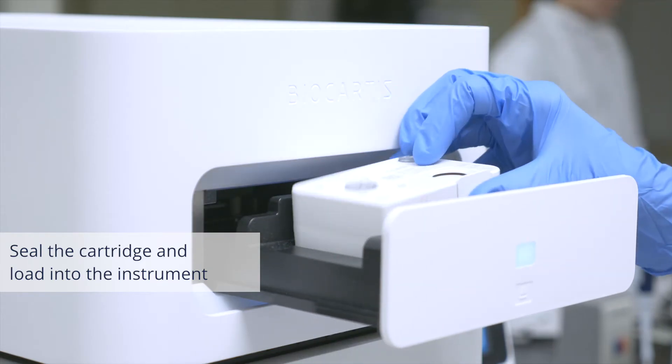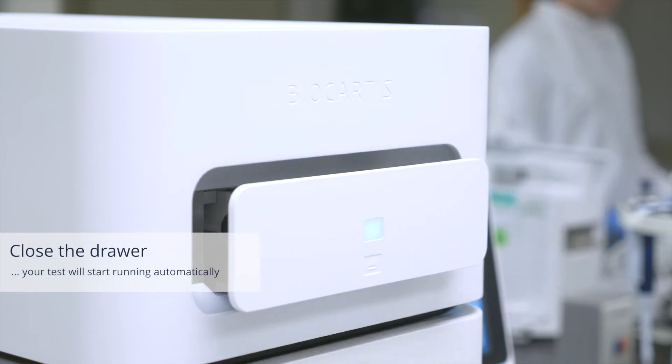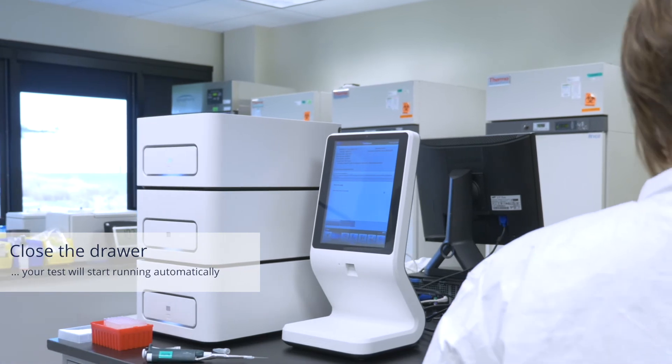Next, insert the loaded cartridge into the instrument and close the drawer. Your test will begin running automatically, allowing you to walk away while your samples are analyzed.